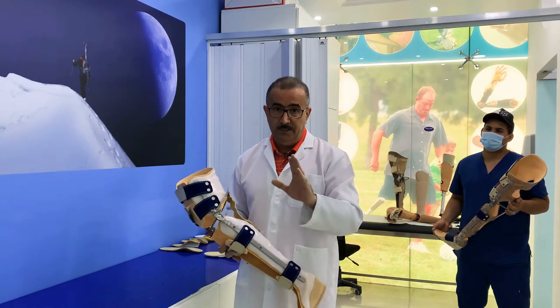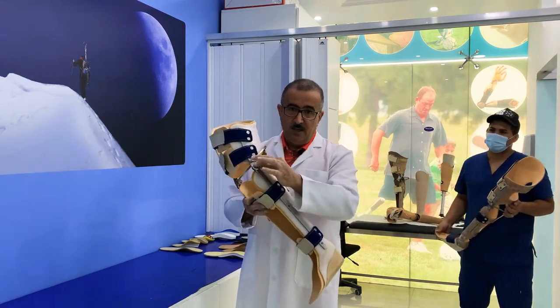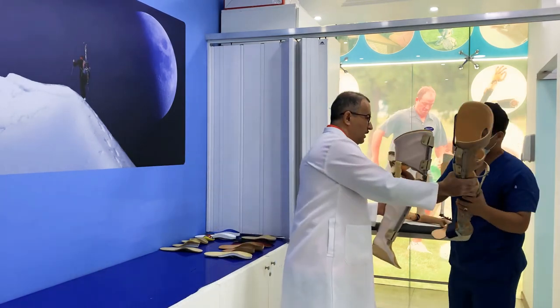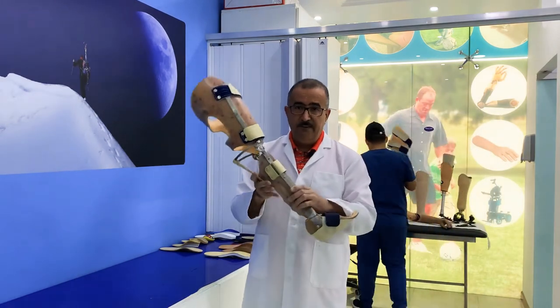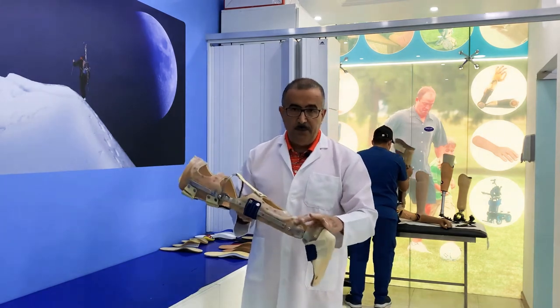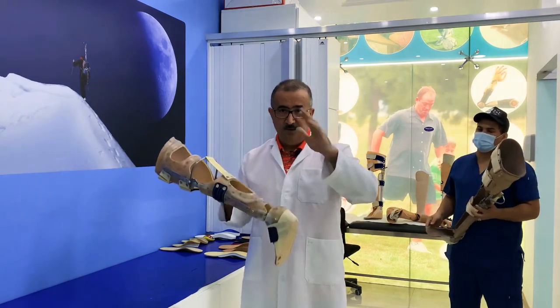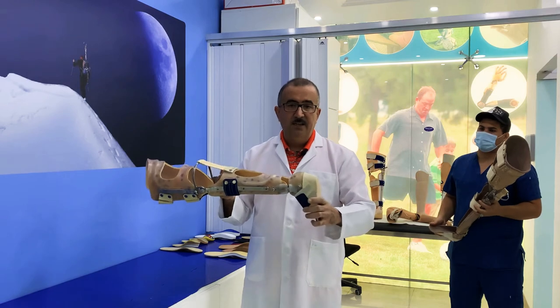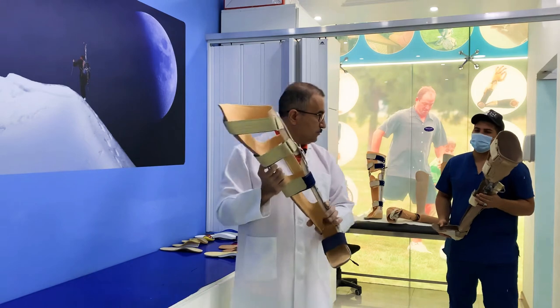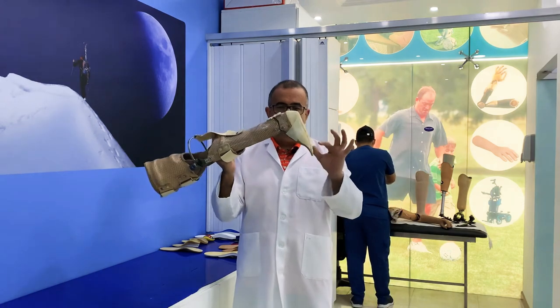This first one is made with polyethylene and all the joints are from Ottobock. The second KFO is made with polypropylene (PP) and has titanium joints. This one also has a joint at the ankle to allow plantar flexion and dorsiflexion, so you can move your foot nicely.